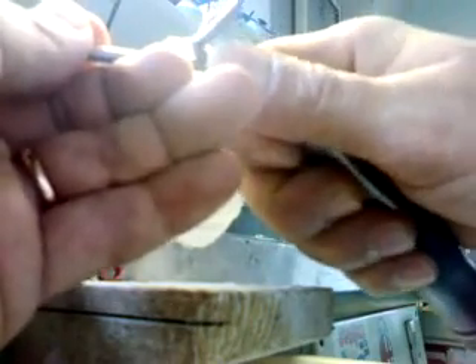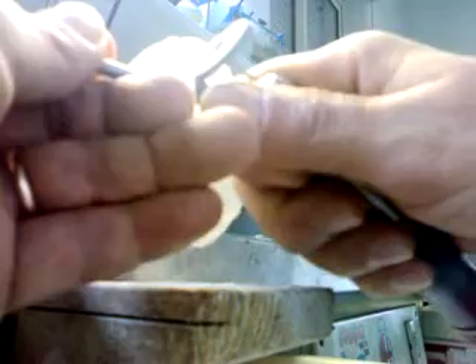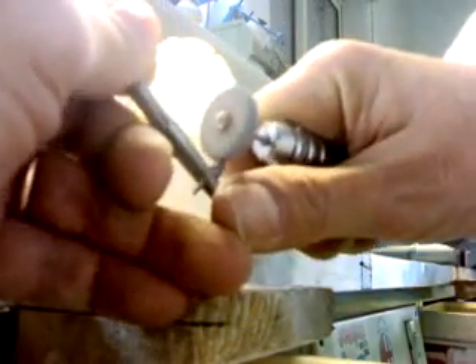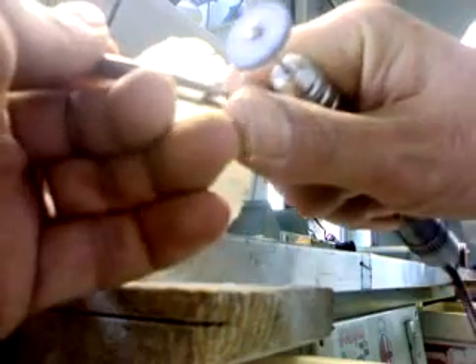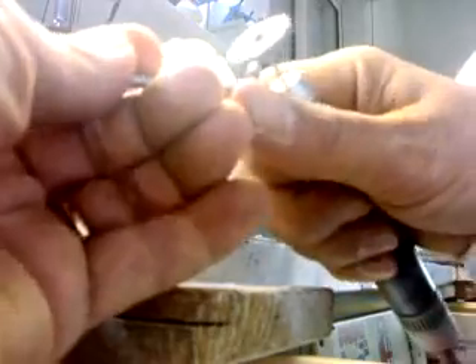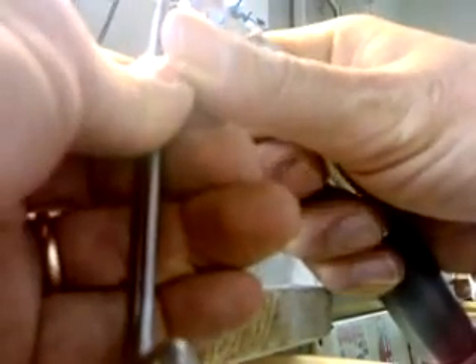What has been done for this post core will be done also for the next one. We have taken off and done most of the job with this heatless stone, as you can see. Most of the job has been done.